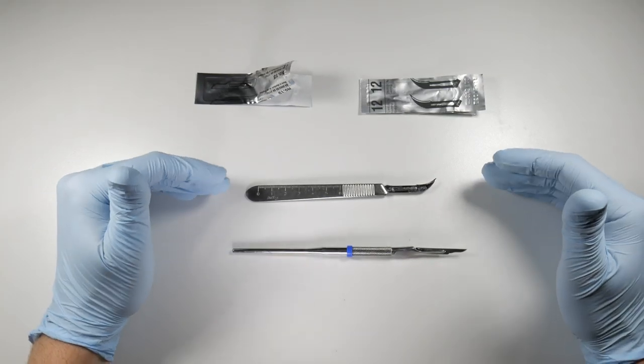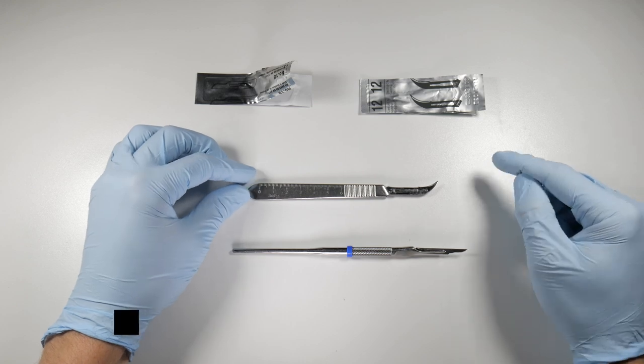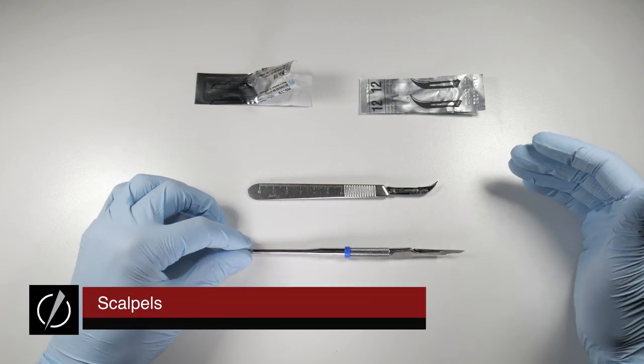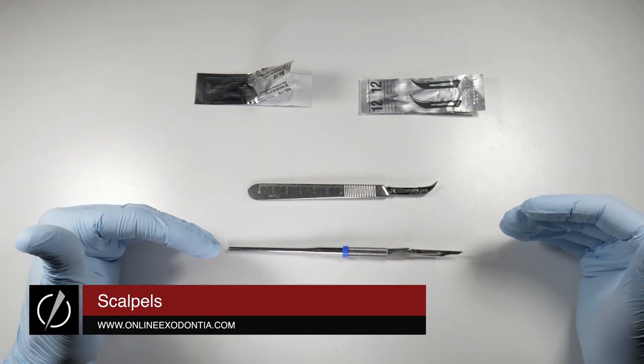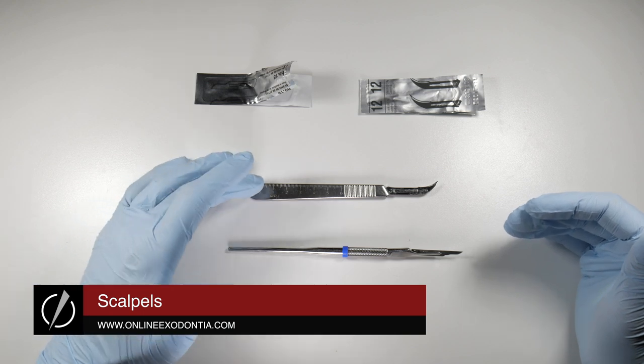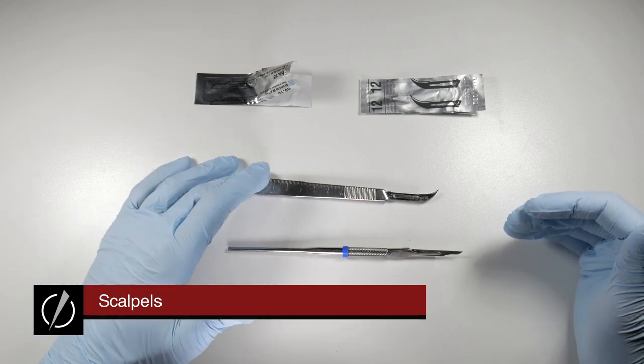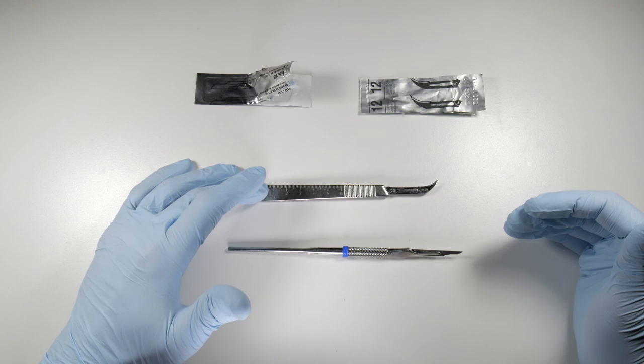I have two different scalpel handles in front of me right now with two different blades. The reason for making this video was just to bring to your attention that we don't necessarily have to use the standard number three scalpel handle.